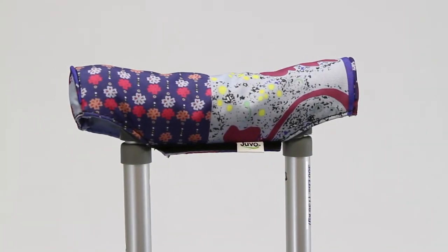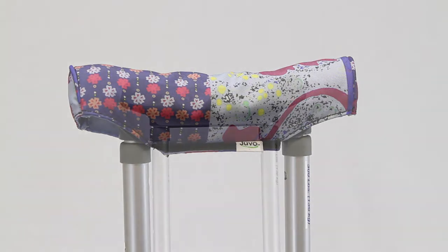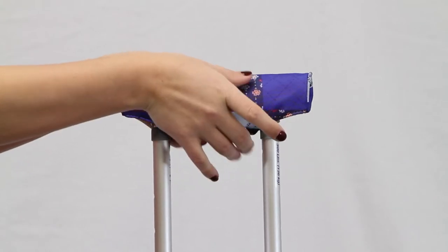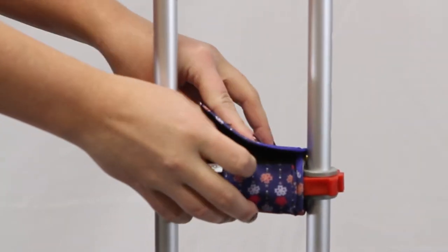Why should your crutches look so medical? Have fun with them! Outfit your crutch pads and grips with stylish designer crutch covers from Juvo. Juvo crutch accessories are a universal fit, easy to fasten, and give a softer, more beautiful personal look to your crutches.